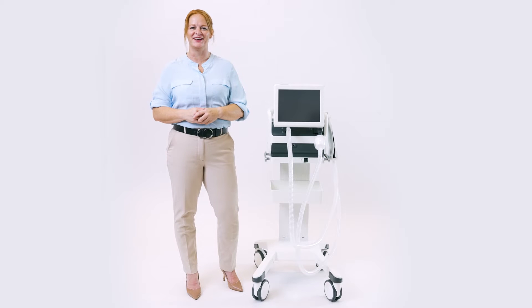Hi, and welcome to the ServoAir training. My name is Jamie, a respiratory therapist here at Getinge.